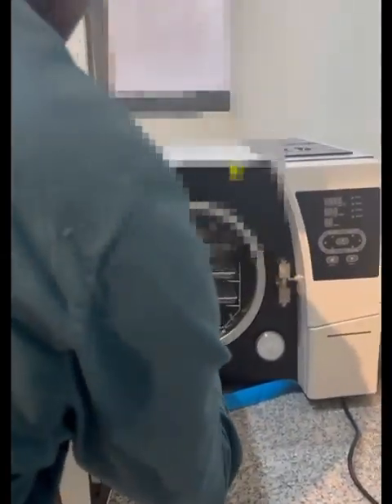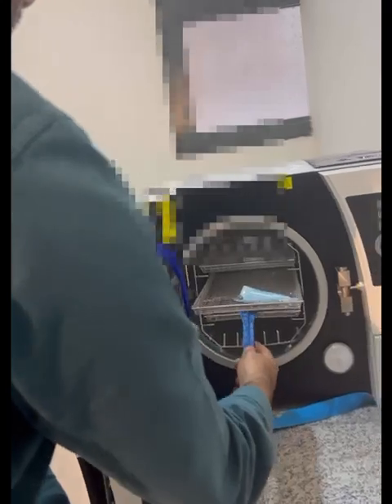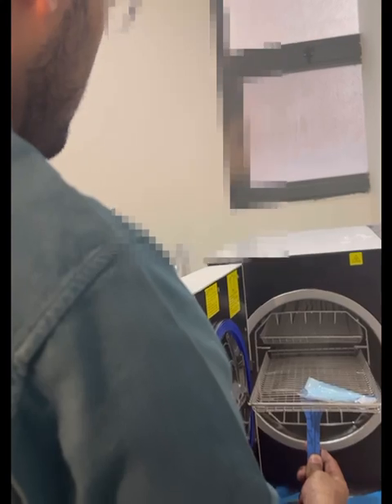Do you need to take the whole tray or just this one? No, this one is enough. Do you need to change this one? Not working? It works, but I don't know how to hold this. Because the tray is very warm, it is very hot, so we can't touch it as well. Okay, let it cool for something.